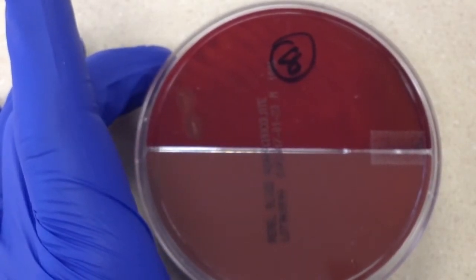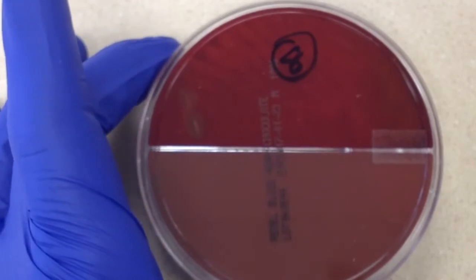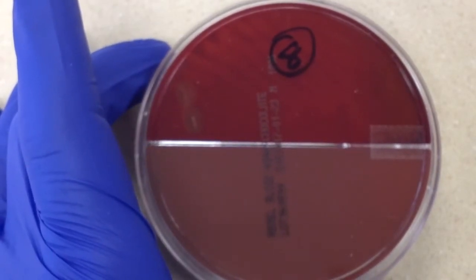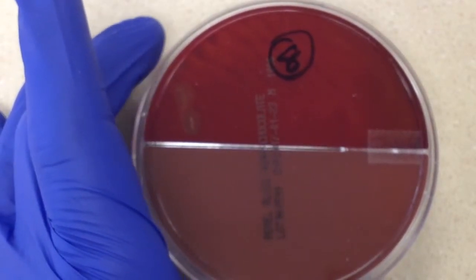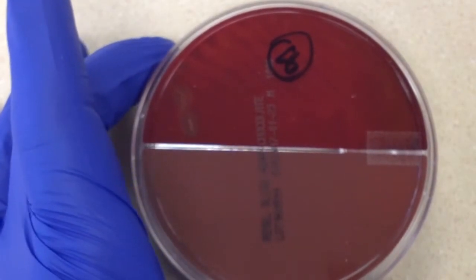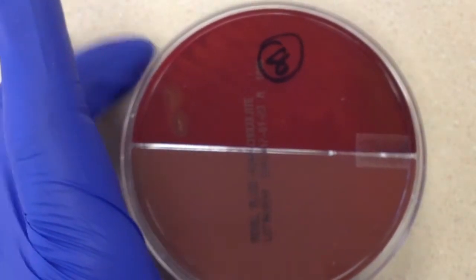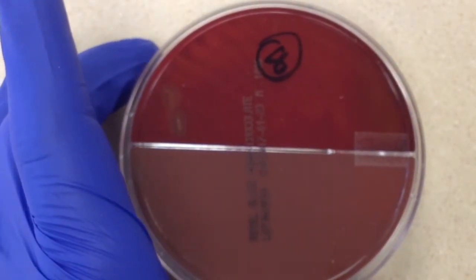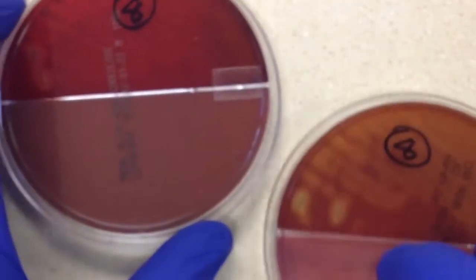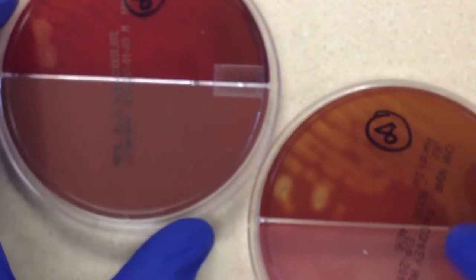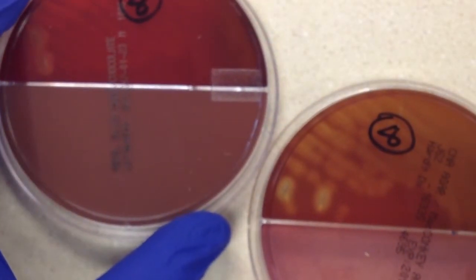And then really with any culture type, the things that I just listed are the most common, but every bacterium has the possibility of being a pathogen. So that's one thing that's kind of interesting about microbiology is that you can never just turn it off. You can never become a robot. You always have to assess every situation, every plate, every culture individually, and make your judgment.